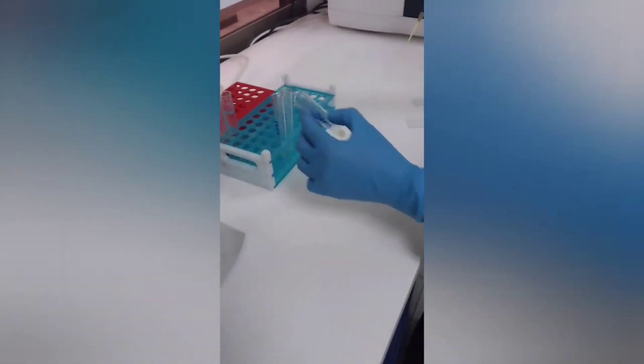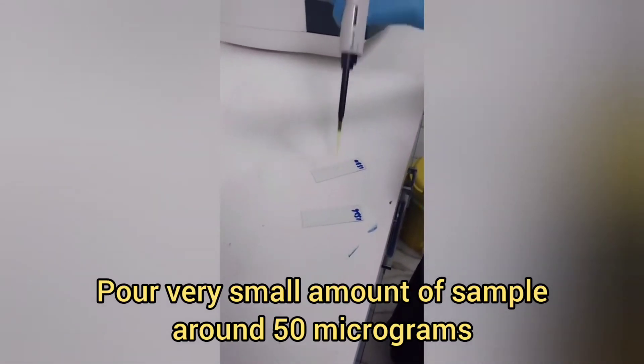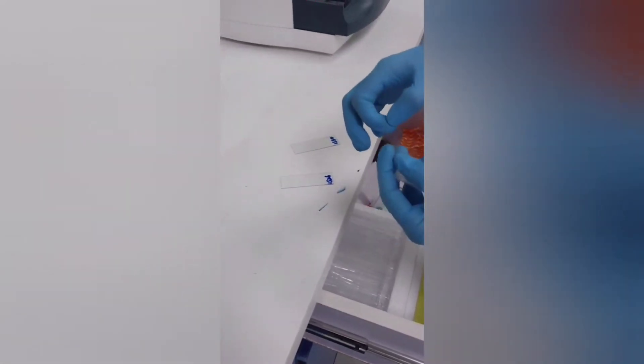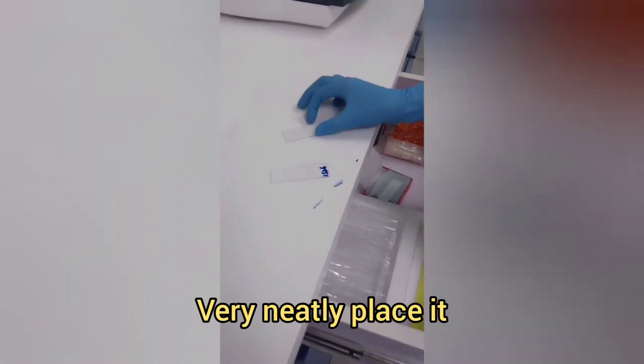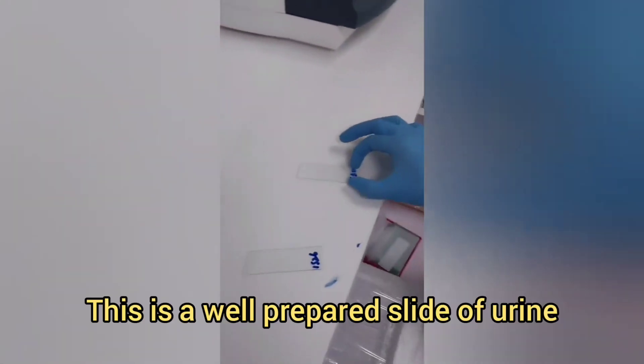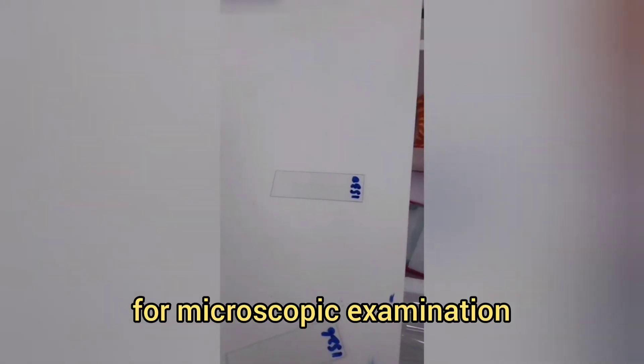Use a micropipette, take the sample matching the number, and hold a very small amount of sample — around 50 microliters. Now take the cover slip, place it very neatly, and try not to have any air bubbles. This is a well-prepared slide of urine for microscopic examination.